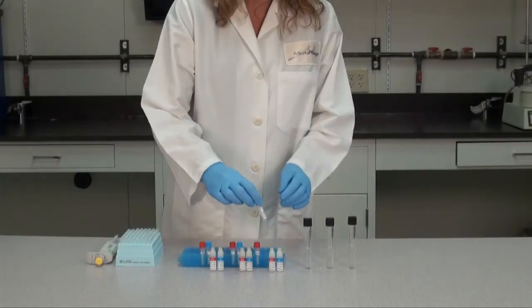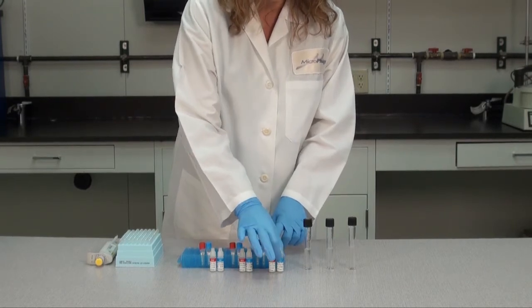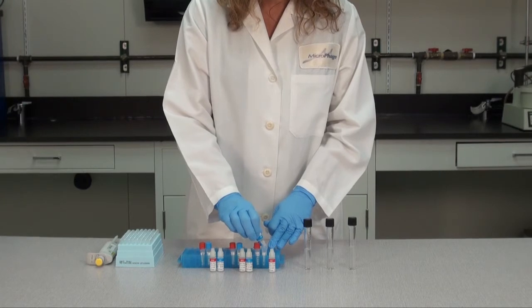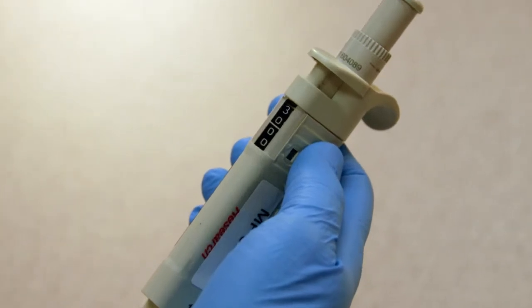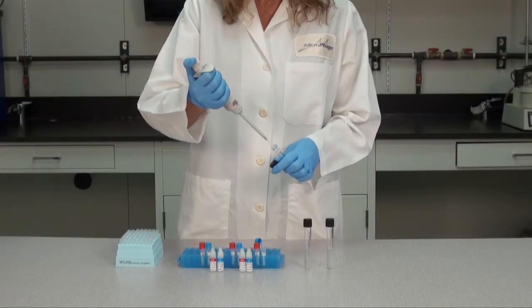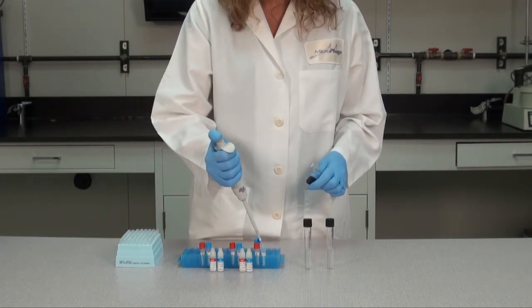From here, you will follow the same testing process as for patient specimens, with one important exception. When inoculating the reconstituted reaction tubes with these samples, you will use 30 microliters of each control suspension instead of 10 microliters as used previously in the patient sample testing procedure.